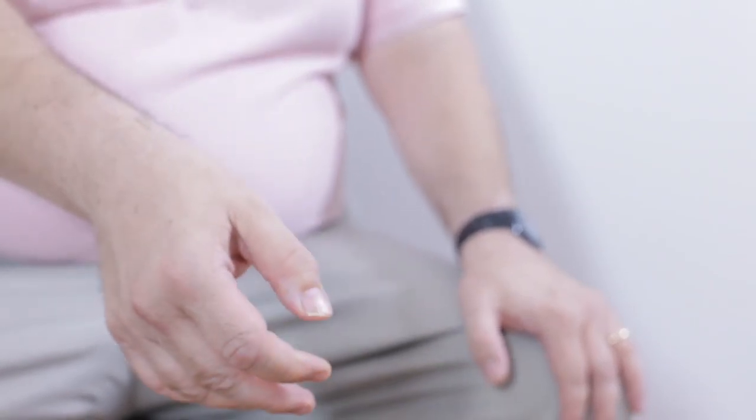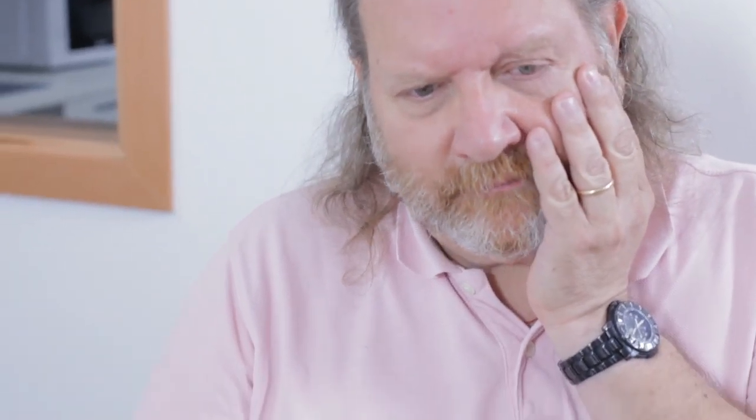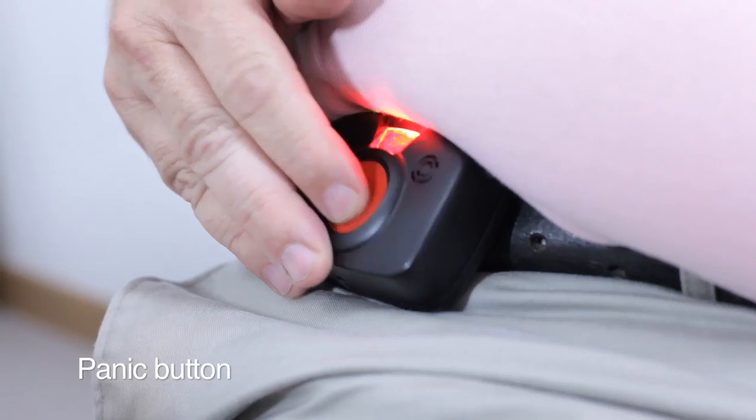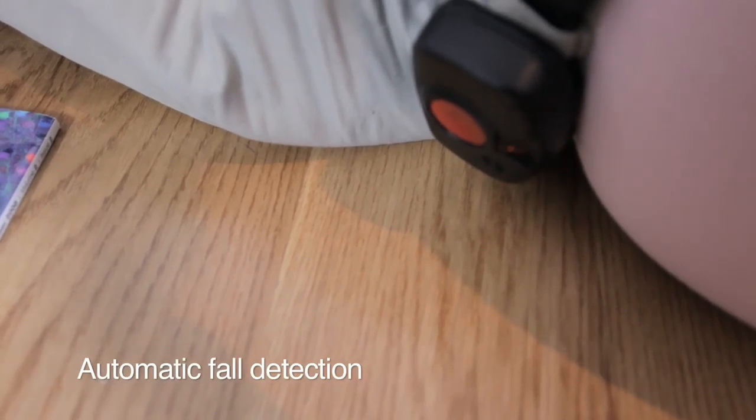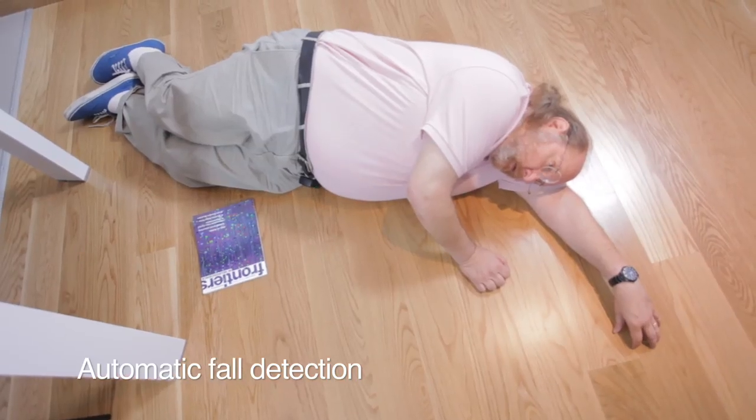It also includes a panic button that can be pressed at any moment to send an alarm message if an emergency occurs. At the same time, the fall detection system monitors continuously and in real time the activity of the user to detect automatically if a fall occurs.